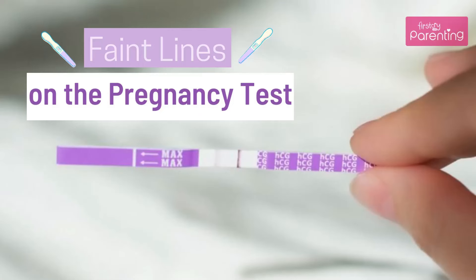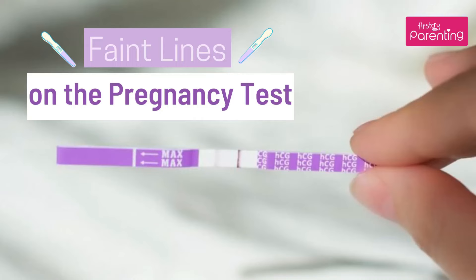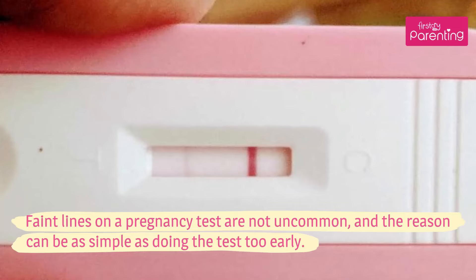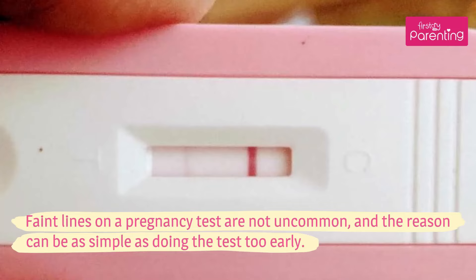Faint Lines on the Pregnancy Test. Faint lines on a pregnancy test are not uncommon, and the reason can be as simple as doing the test too early.